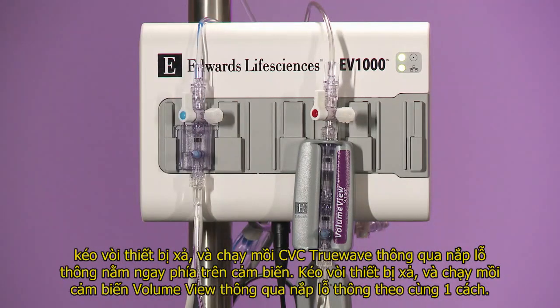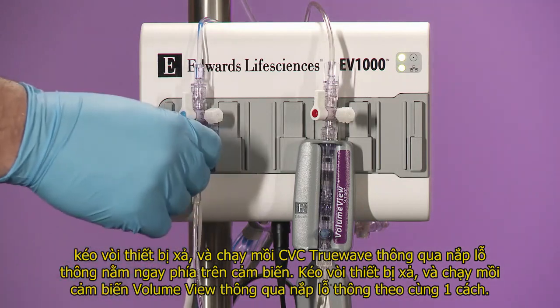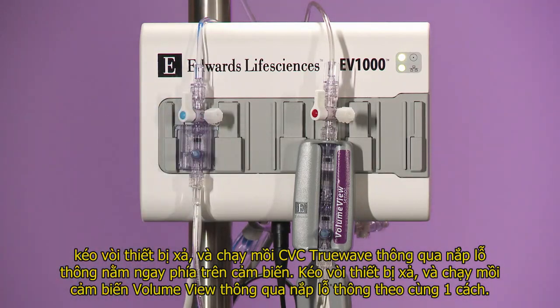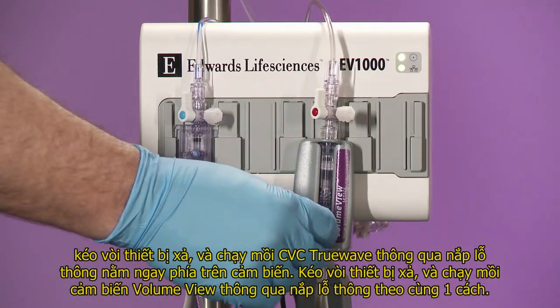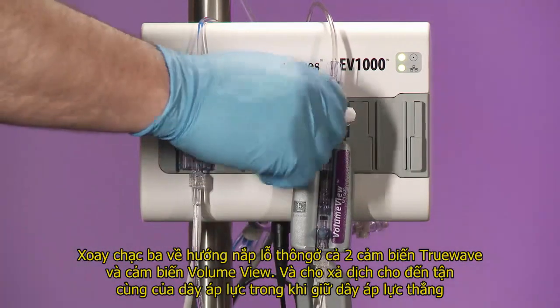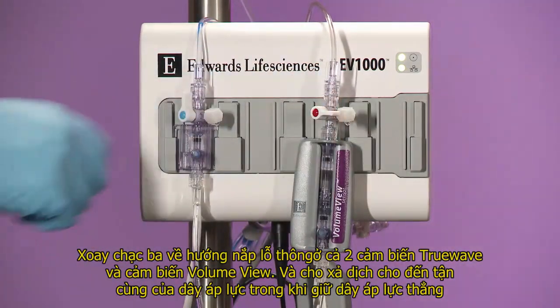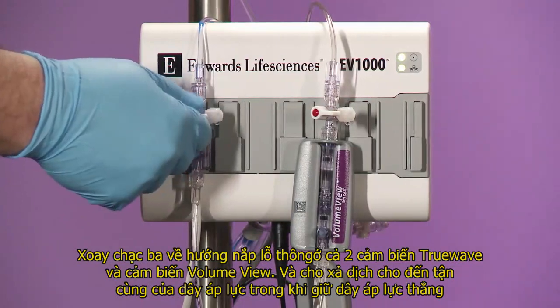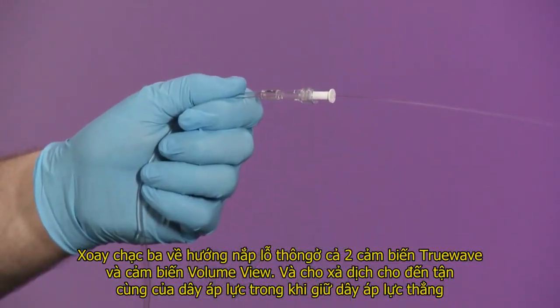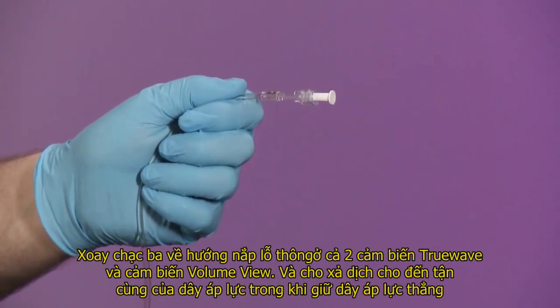Pull the snap tab and prime the TrueWave CVC transducer through to the vented cap just above the transducer. Pull the snap tab and prime the VolumeView sensor through to the vented cap in the same manner. Turn the stopcock off to the vented cap on both the sensor and the transducer and flush to the end of the pressure tubing while holding the pressure tubing upright for each component.